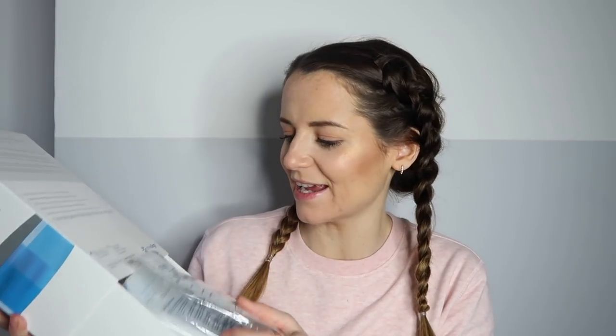Let's get on with it and change to tray number eight. So I've got a box here — this is what my dentist gave me last time because I wasn't going to be seeing him for a couple of months, so he gave me a box with a bunch of trays in there, and they very kindly put dates on them for me. Today's the 24th so I'm going to be going into that one. Each tray comes in a little sealed bag like this. If you're ever worried about them being non-hygienic or tampered with, let your dentist know.